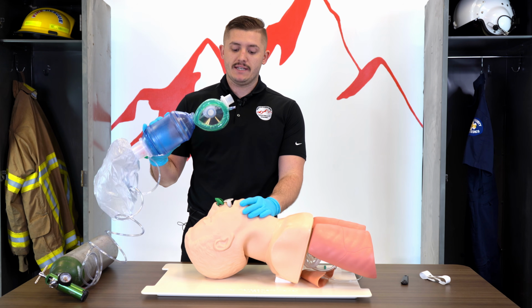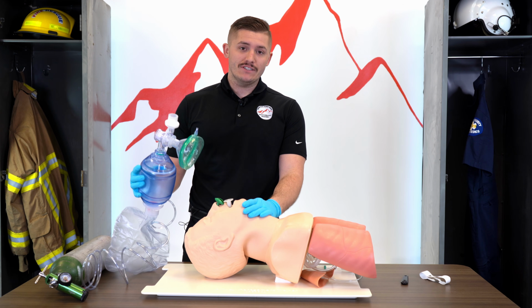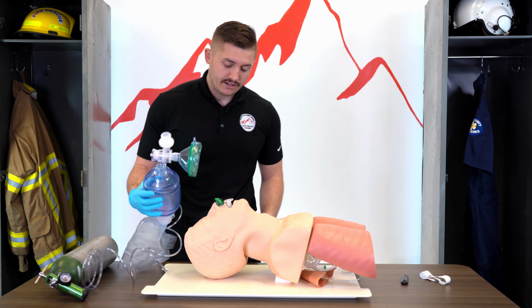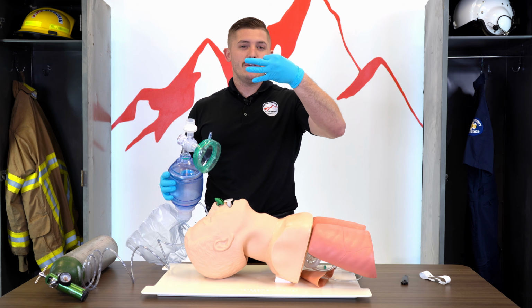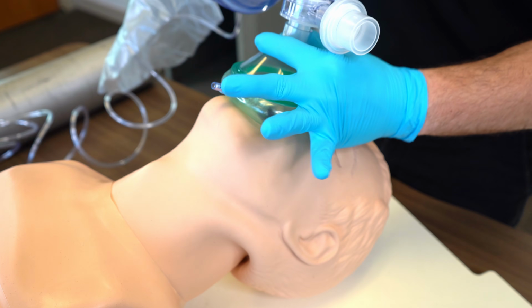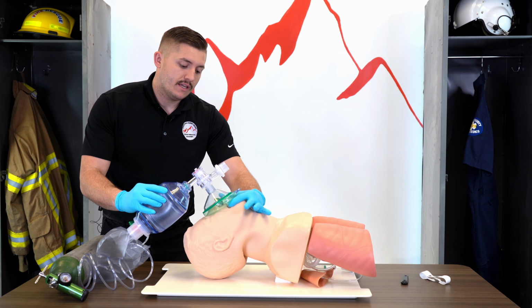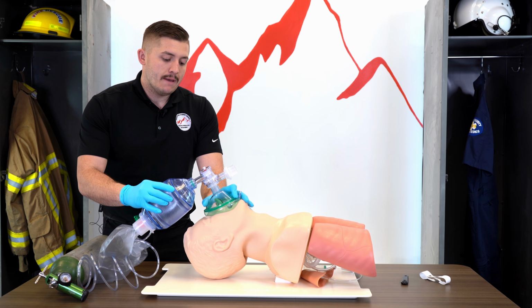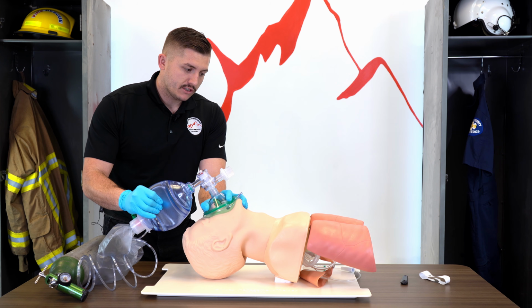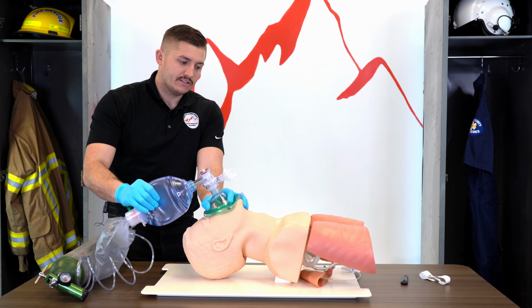Delivering a breath and maintaining a good seal on an actual patient with just one person is very difficult to do in the field. The best technique that I could tell you would be the EC. So you have this E with your fingers, and you have the C with your fingers. Your C goes on top, and then your E is going to go on the jaw and pull that face. You're pulling the face into the mask and pushing down up here. And then when you deliver a breath, you basically just want to make sure that chest is rising and no air is coming out of that mask seal that you have.